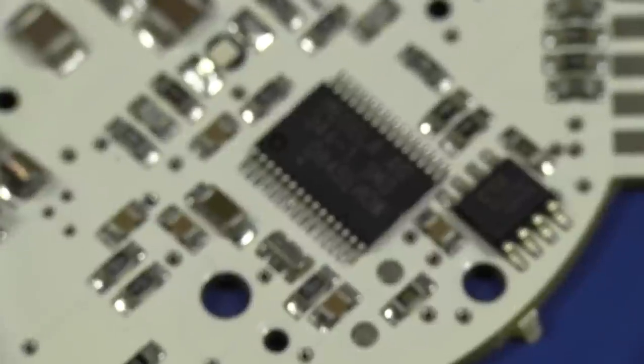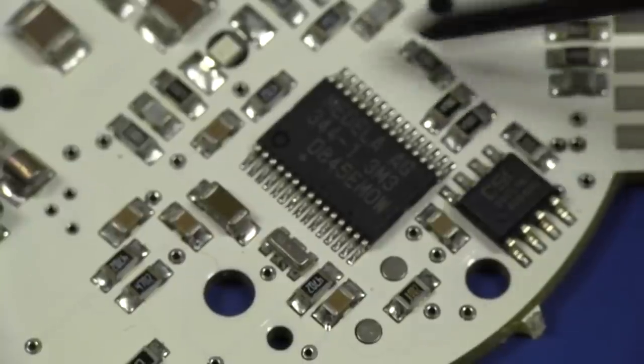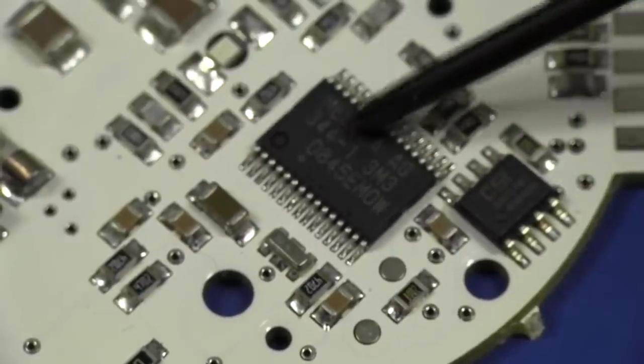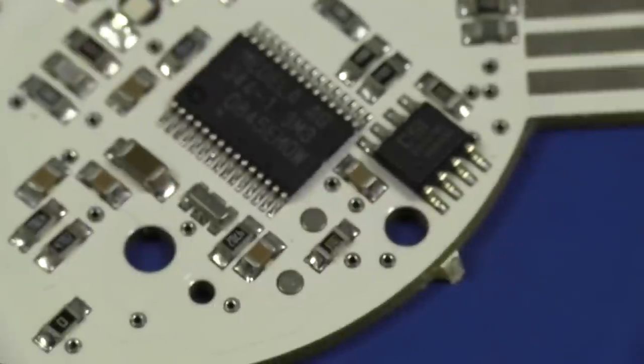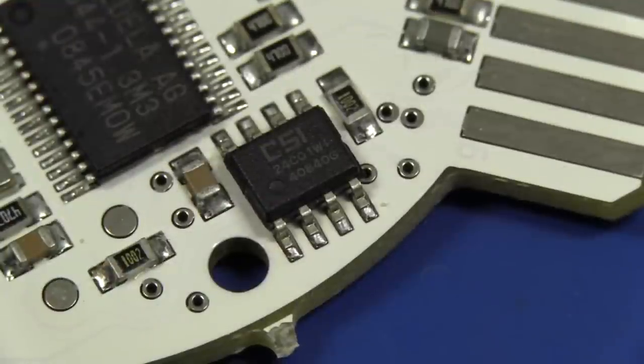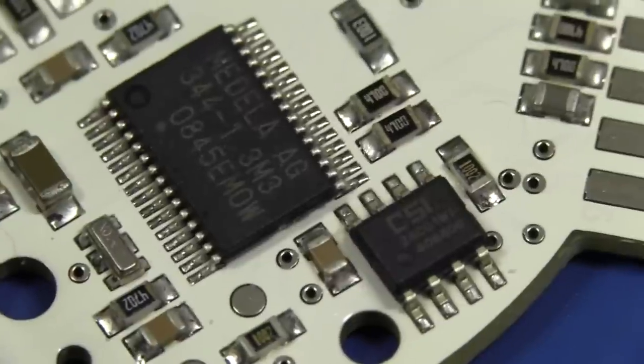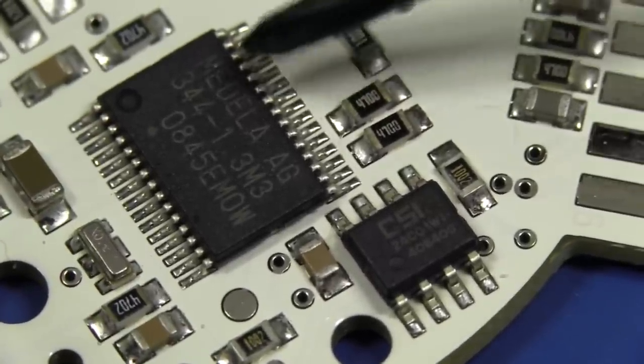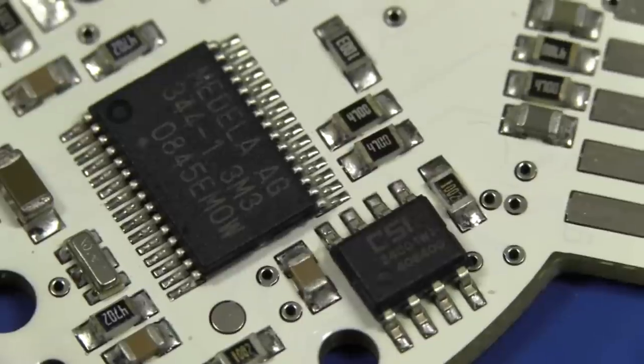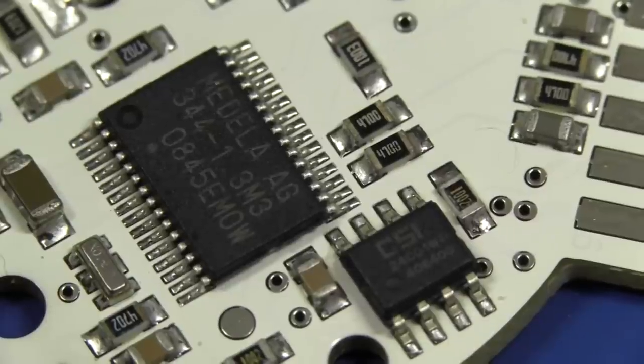These are all hand-soldered onto here, but they look hand-soldered on beautifully, as you'd expect in this Swiss-made, someone in the Swiss Alps is there rubbing their grey beard and they're soldering each one at the right angle. Oh, beautiful. Anyway, the quality of construction is excellent. Let's take a look in some more detail. Now, one of the first things I see, I just went, aha! This little sucker down here, if we zoom in on this, because we're gonna, I'll look at the components later, other components, but this immediately drew my eye. It's got 1.5 written on the side of it, and for all the world, that little puppy there, looks like a surface mount fuse.